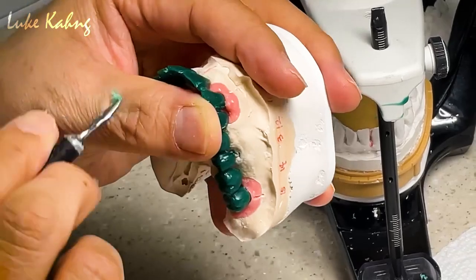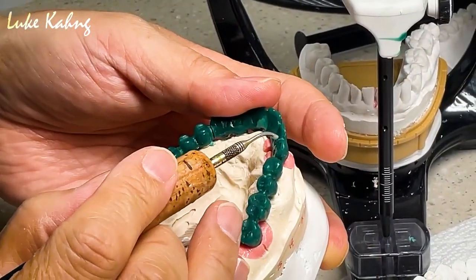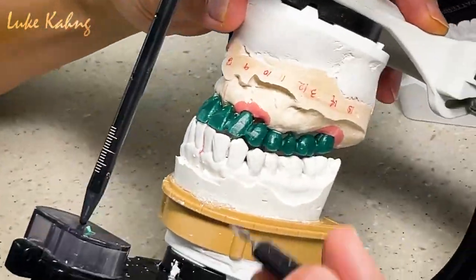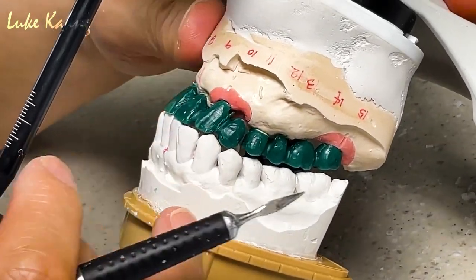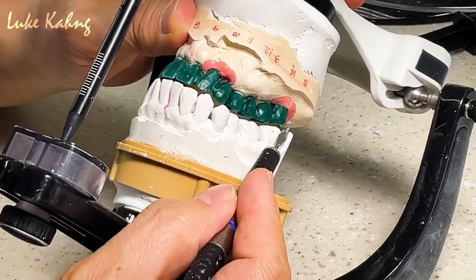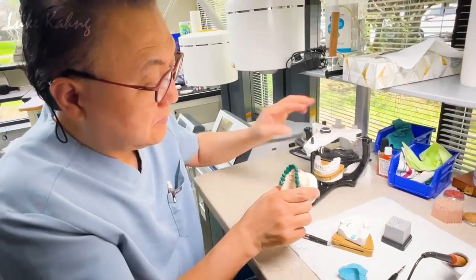Then I can make a better inside tip. I don't have to make it really thick here. But still here it is fat — I have to bring it down more, that area. You see here is a little bit fat, so I'm going to grind more too. Then a little bit more — like I said, this.